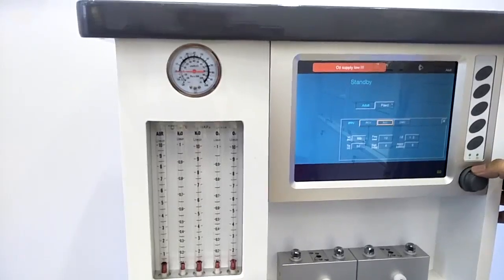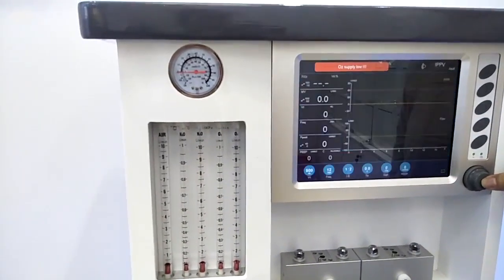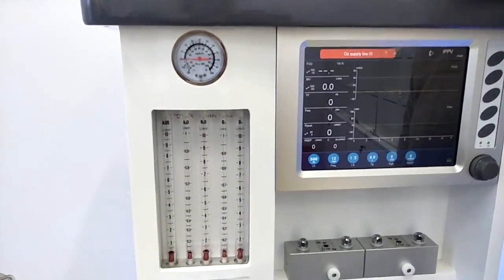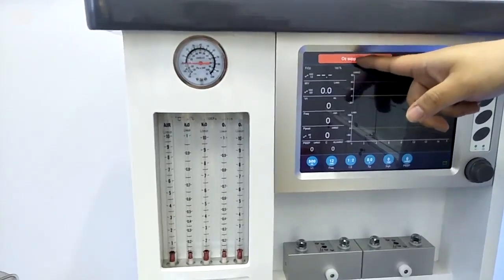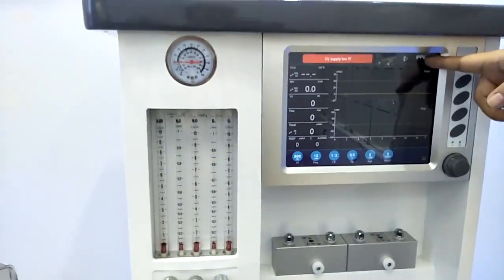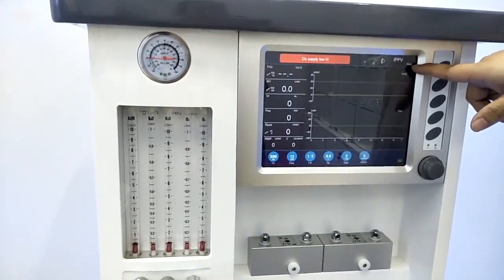Once we set for all the parameters, we just move to here and press the rotate button again. Then we will get into the main interface. And under the main interface, we have the little four parts. The above side is the alarming area, with the red and yellow color for the alarms, and also the different frequency of the voice. And here is the ventilation mode we are choosing now, and it will show for adult use or children use now.